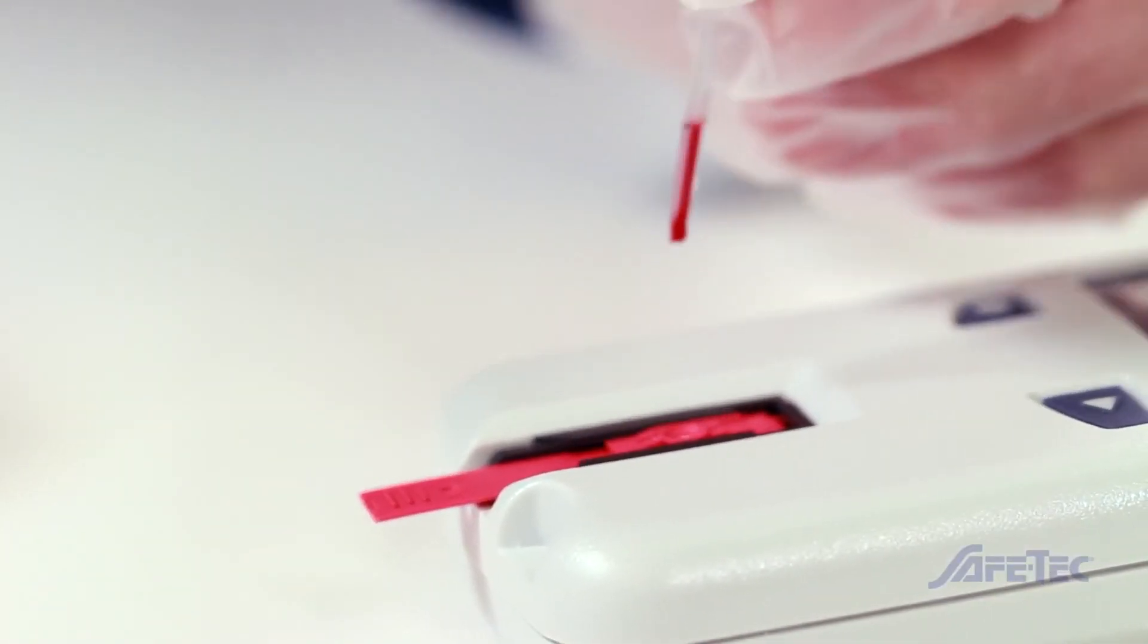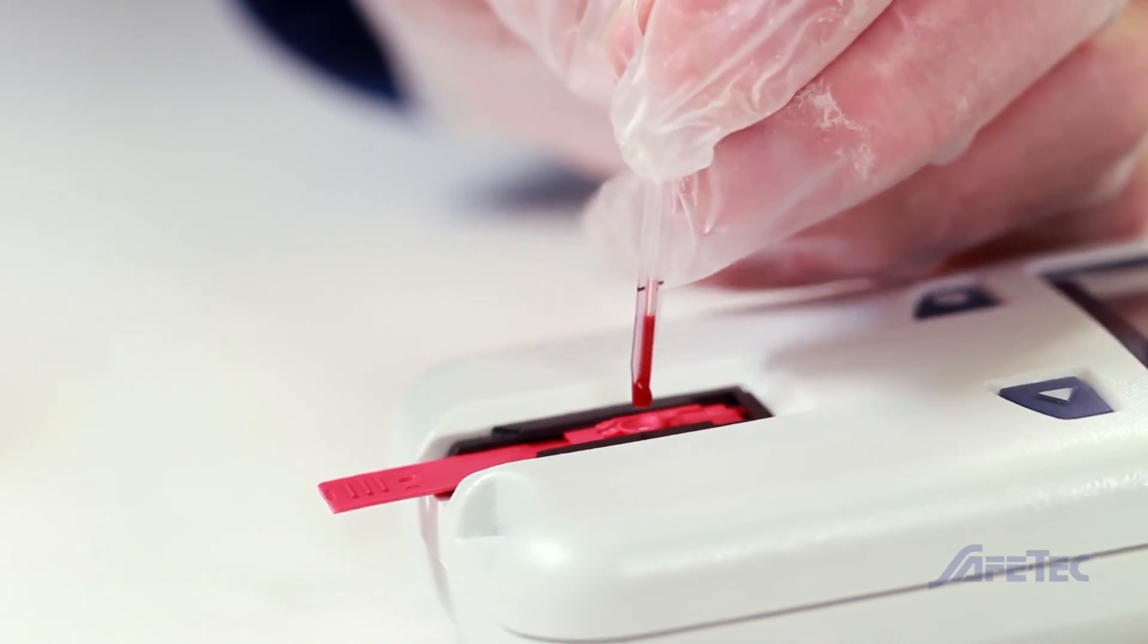Once the sample is collected, squeeze the bulbous end of the tube to dispense the sample onto the test and then discard.